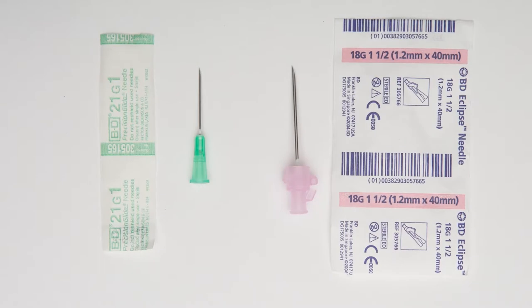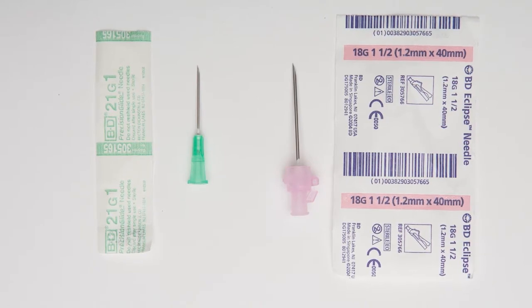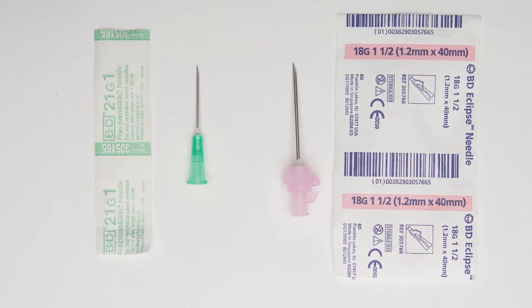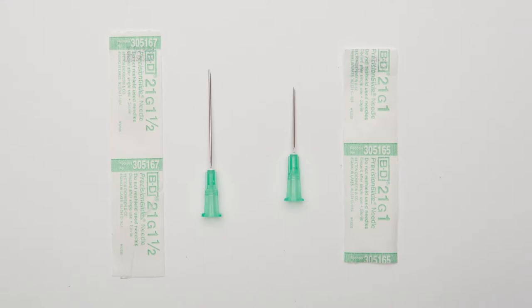If emptying a cyst containing very viscous material, a larger needle, up to 18 gauge, may be needed on very rare occasions. For fat pad biopsy for amyloid evaluation, we use a 21 gauge needle in order to acquire larger fat fragments.